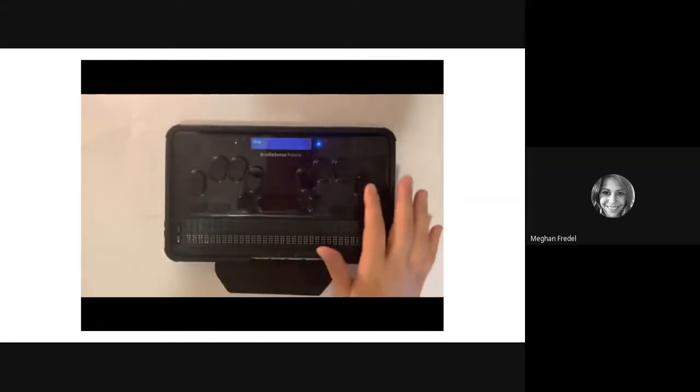Then I'm going to hit enter. I have one dog. And when I check my Braille display, my cursor is at the beginning of the word dog. I'm showing this with one sentence, but if you wanted to find a word that maybe had been repeated many times in a longer document, you would just go ahead and press Enter F, and then you would find the next spot where that word is.